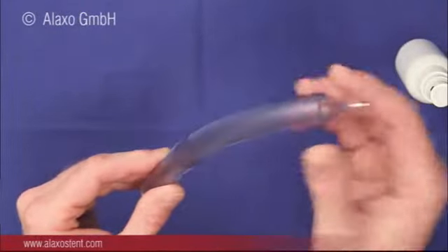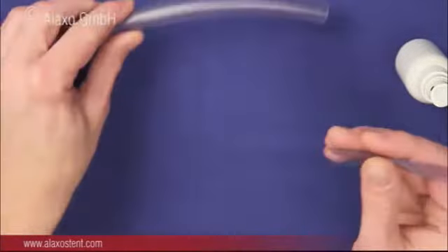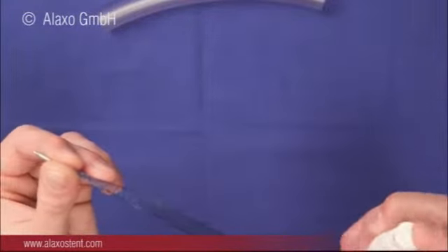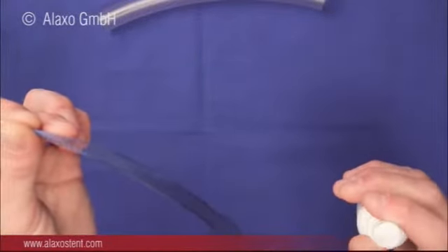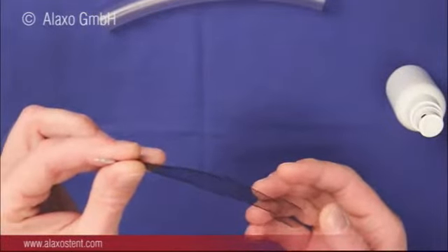For removal of the stent from the cleaning tube, please do not pull, as the stent then compresses. Instead, push. As the third step, the stent is sprayed with a cleaning spray. Please let act for 1 minute and then wash off with flowing water. Finally, the stent is sprayed again and the cleaning solution is left to dry.